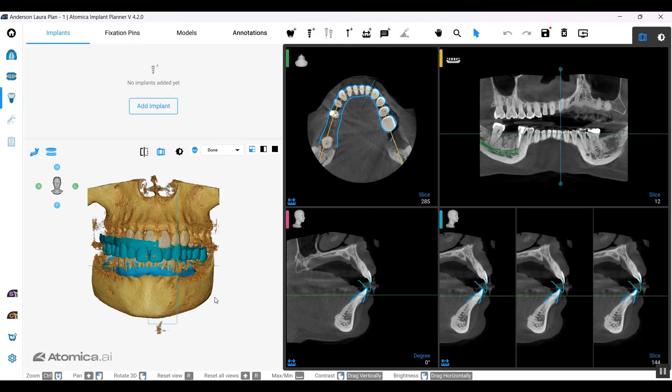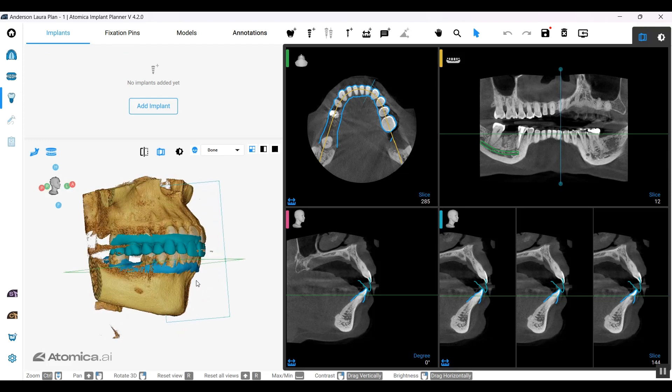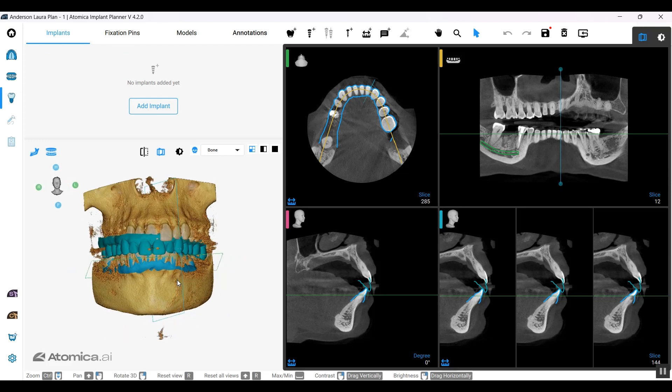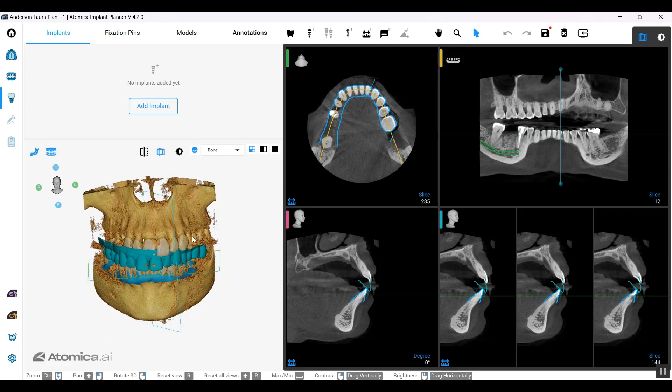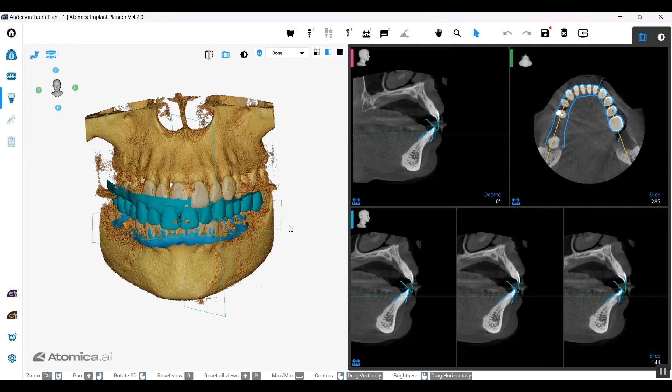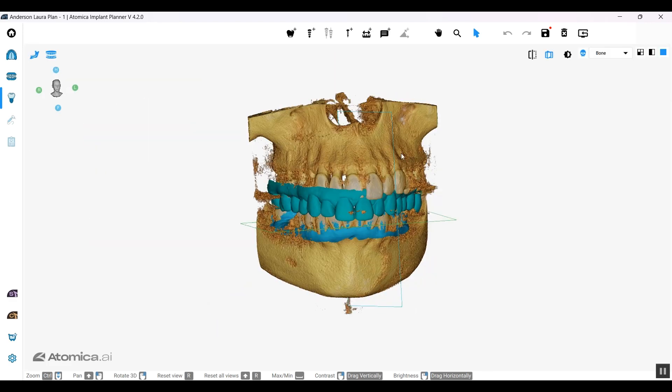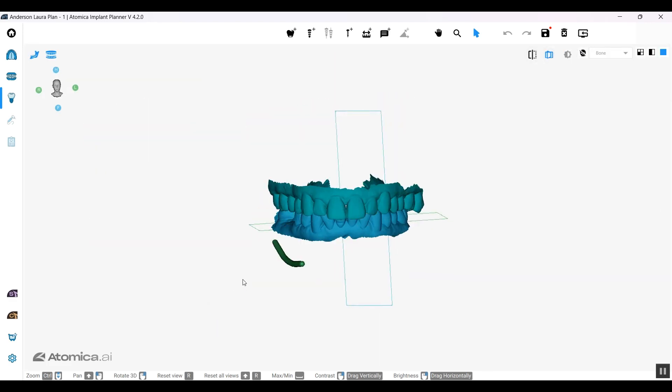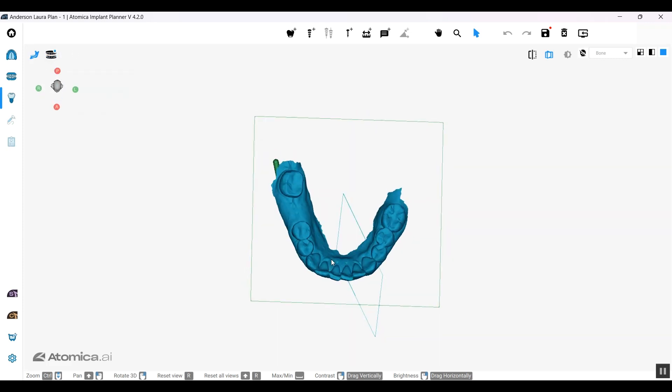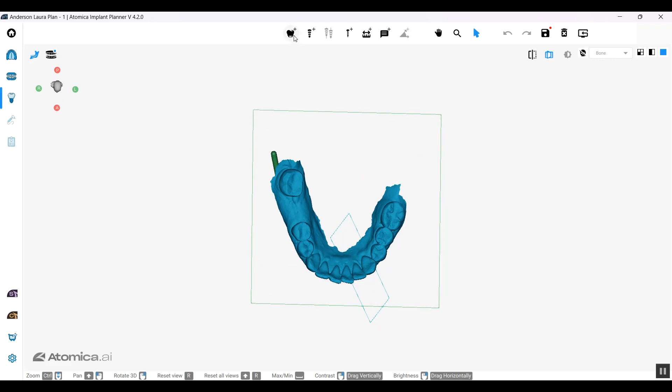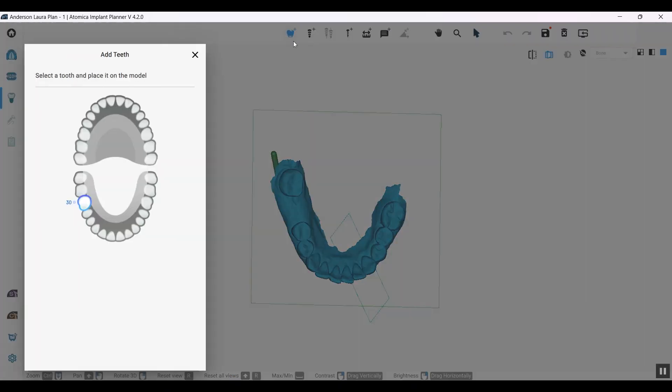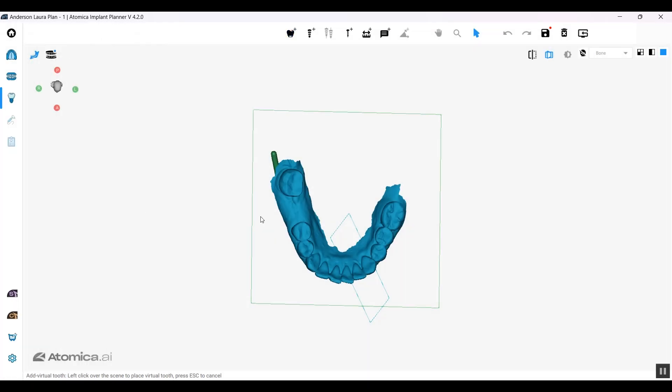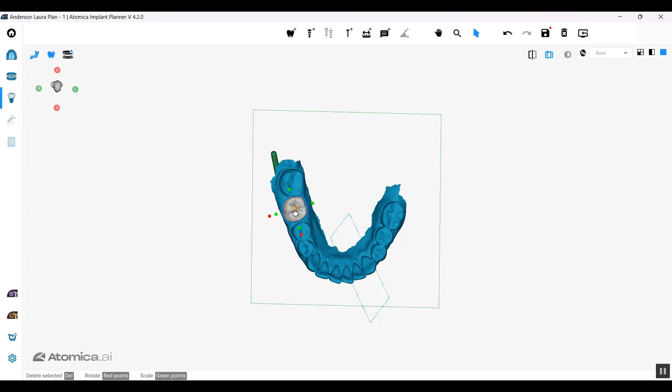Let's move forward to the next step. Before starting planning and putting our implant, let's add our virtual crown. We're going to put that on full screen, hide the maxillary model, and start placing our crown. I'd like to start with the occlusal view and selecting the concerned crown and start positioning it.